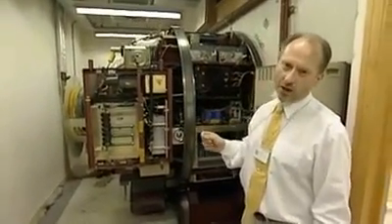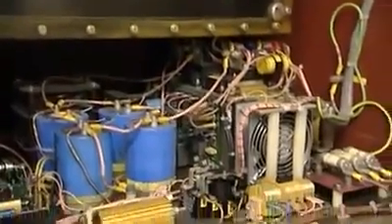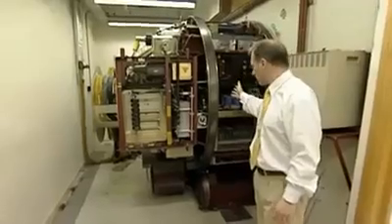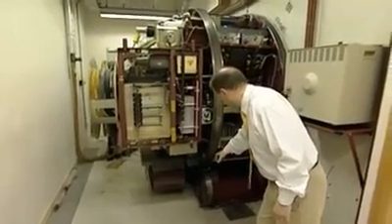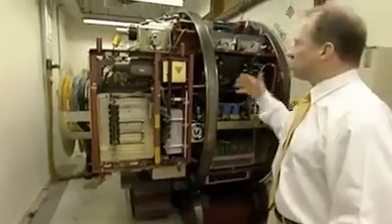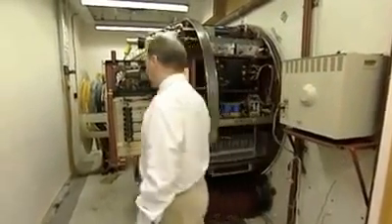Here we are at the back of the linear accelerator, behind the wall of the gantry. There's a lot of electronic equipment and a lot of heavy machinery. We have a lot of high-tension cables. The unit has a gantry mechanism running on runners, and there are counterweights here.